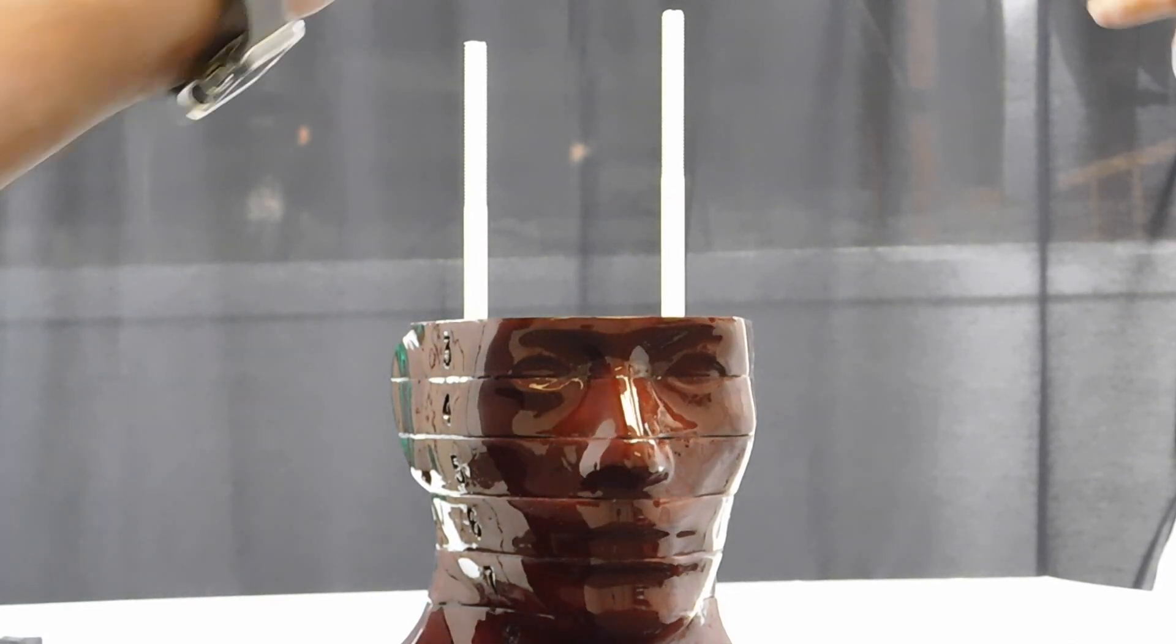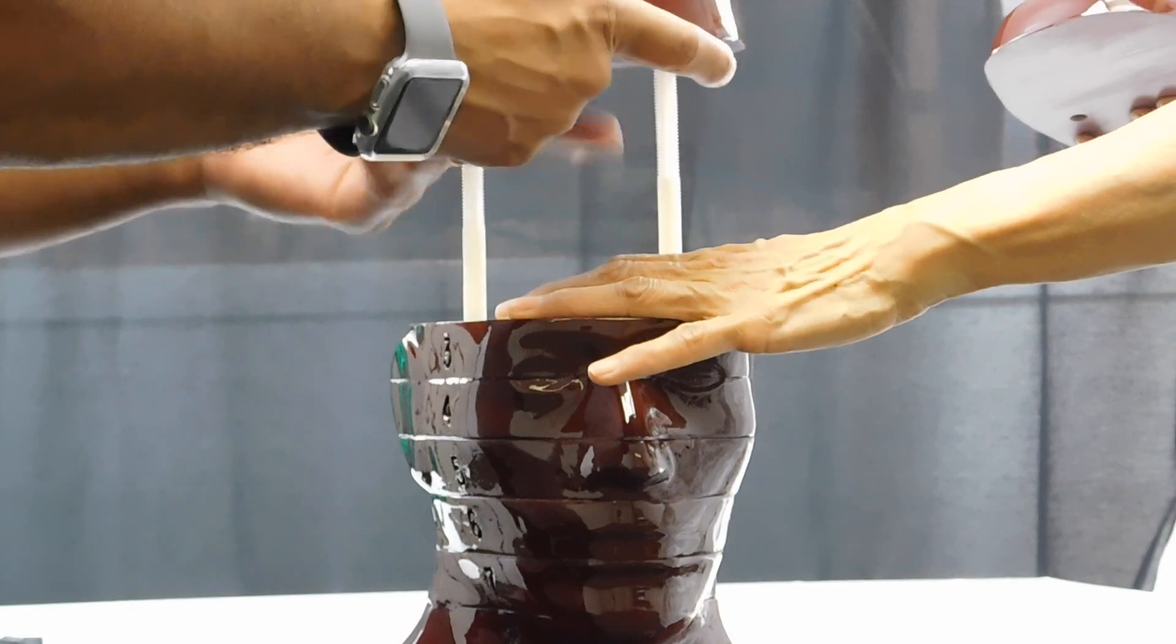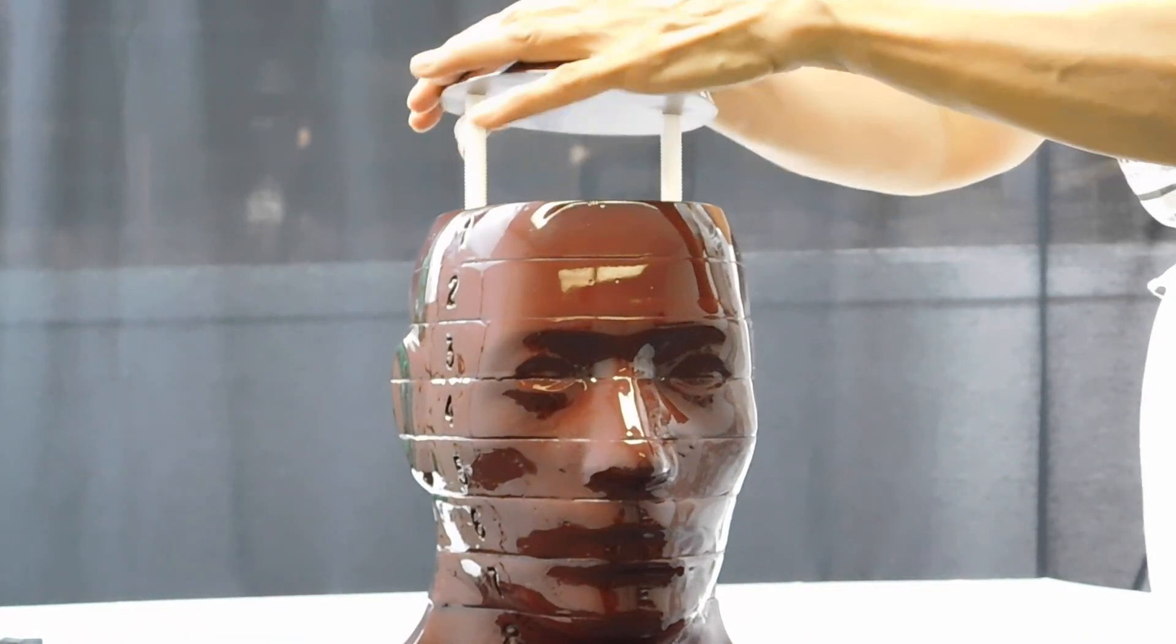Continue placing sections 9 through 1, beginning with the highest number, working backwards. Then, place the very top of the head.